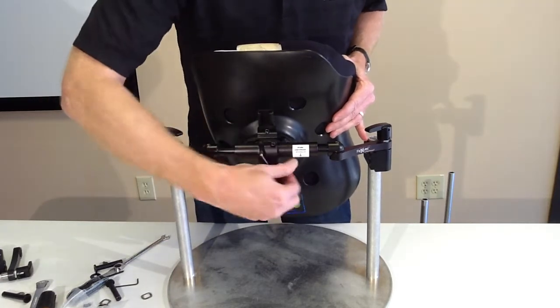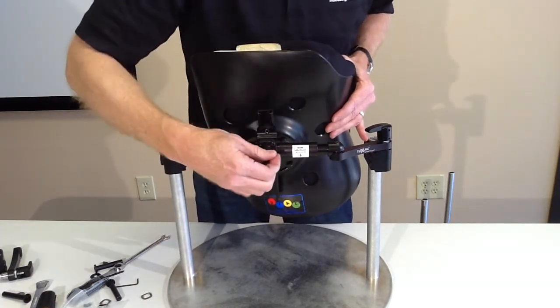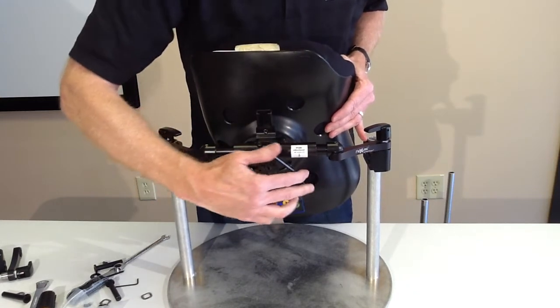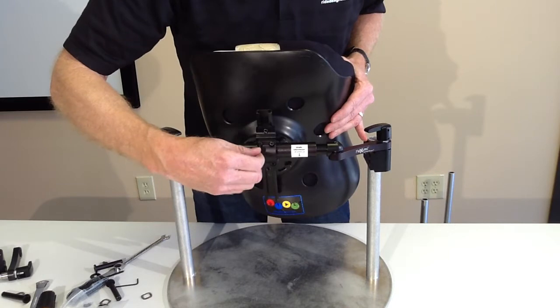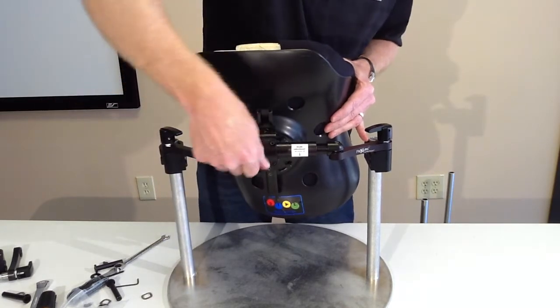There's no one true way of the progression on this, but I'll tell you how I like to do this. I like to tighten down the seat to back angle, get that pivot taken care of.